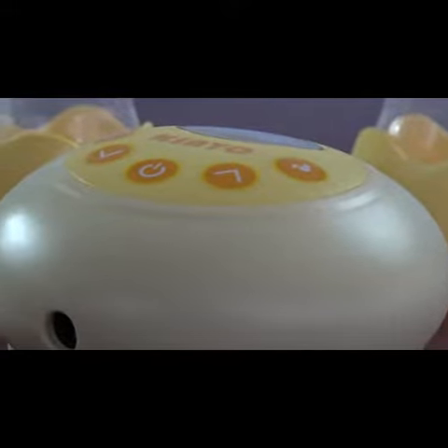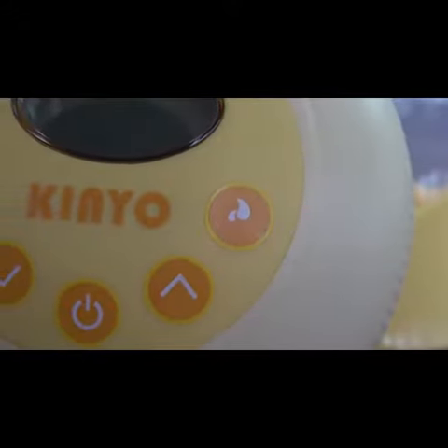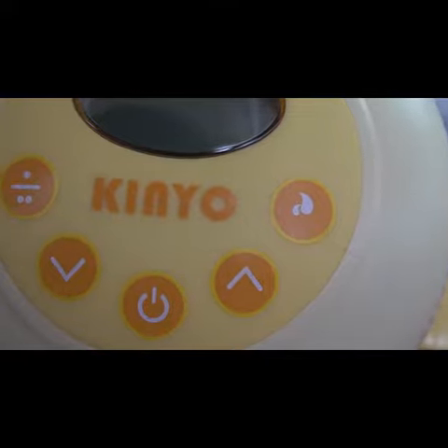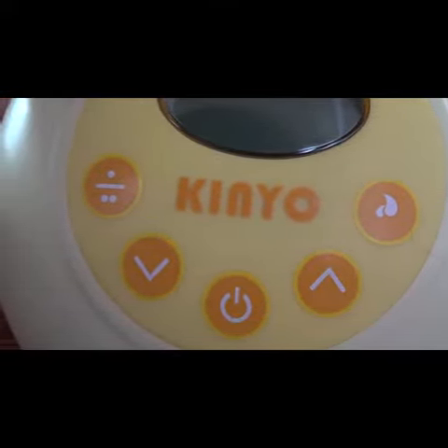If you have recently given birth, you are no doubt experiencing the daily dilemmas motherhood gives, and choosing the best breast pump is no exception. This is extremely important because the quality of your breast pump will not only reflect on your physical comfort, but also on the baby's well-being.